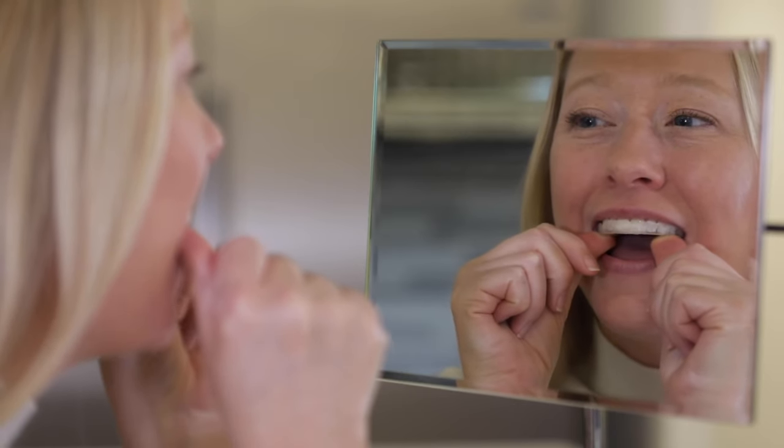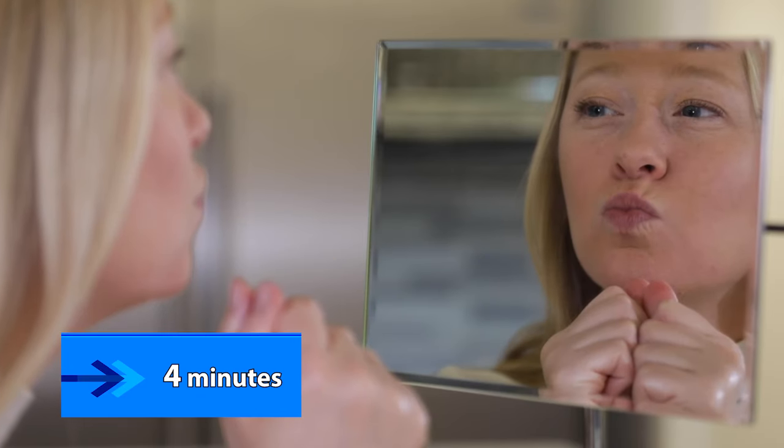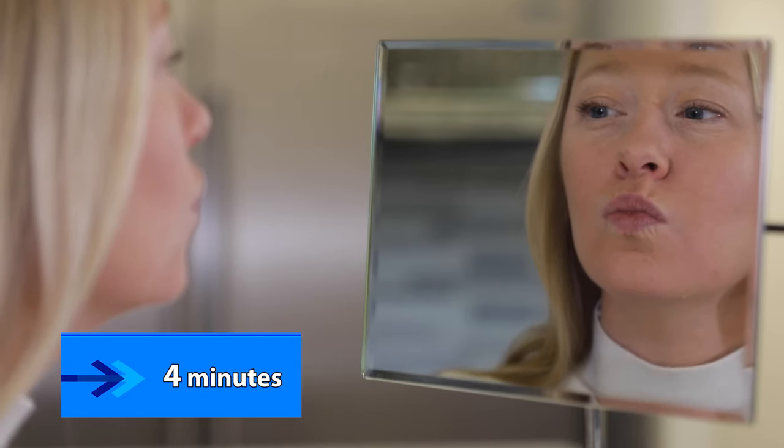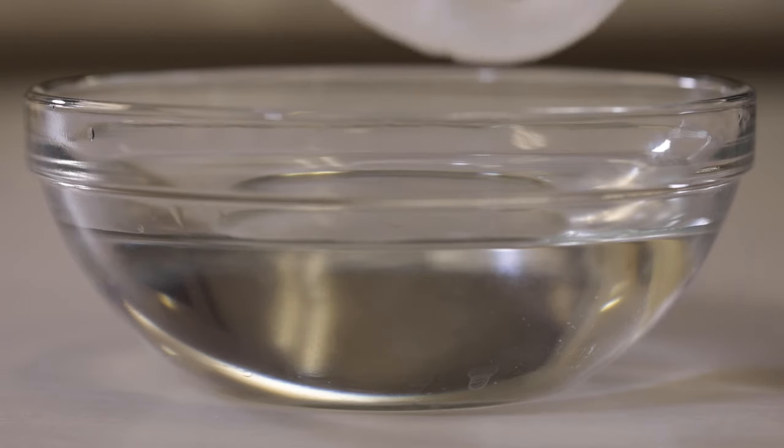Use your thumbs to press the material on your molars. Close your lips and create a suction. Keep the guard in your mouth for four minutes before removing. If you're not satisfied with the fit, simply place the guard in hot water and form it again.